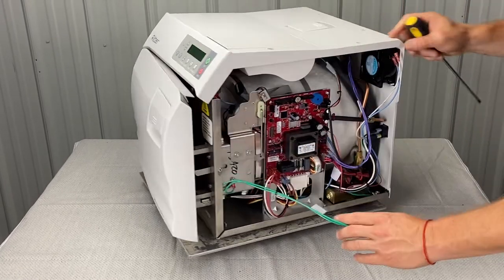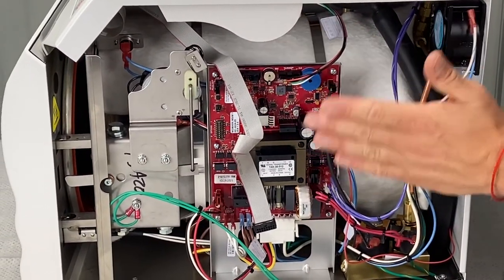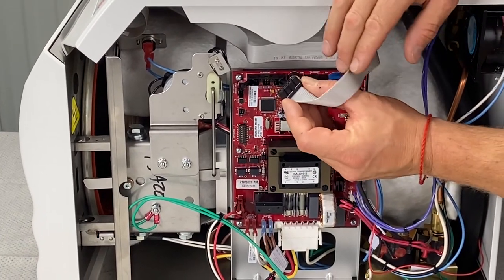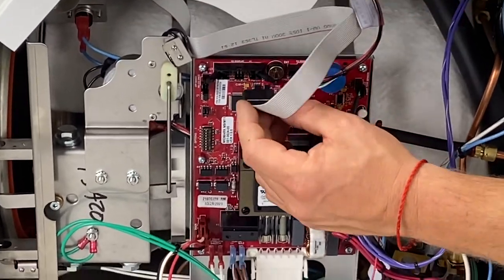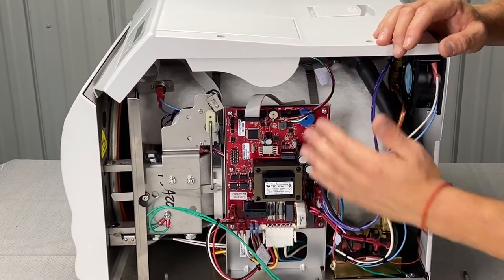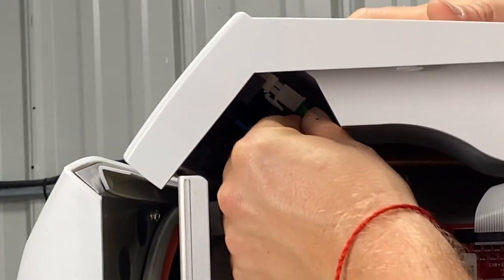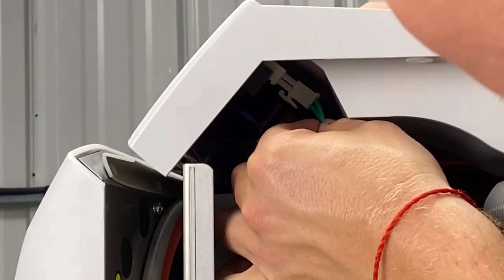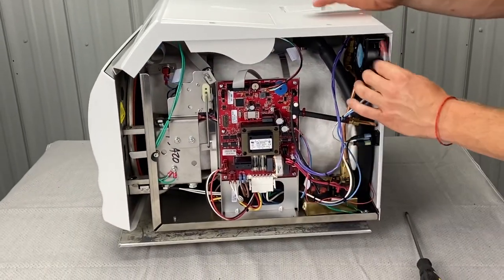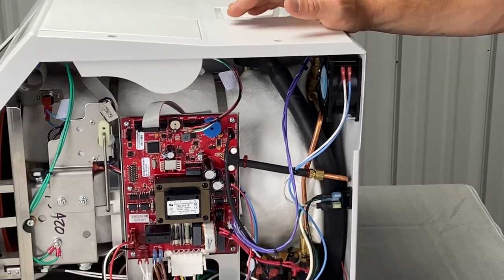Where our main PC board goes — now we're going to hook up the top cover. We have a printer port, we're going to hook that up here. The printer goes there — not all models have this, but this particular one does. Then we're going to take this ribbon cable for the digital display right here. See how there's a little stump there — that lines up with the Molex connector here. Push that into place, make sure those little tongs are grabbing it, then take that and kind of push it behind the PC board. You have your grounding for your display up here — there's a connector in there, it just slides into place, clicks in, good to go. Make sure all the wires are tucked in. We're going to hook up the fan again — the blue goes on the right, white goes on the left. Hopefully you took pictures when you took the cover off.